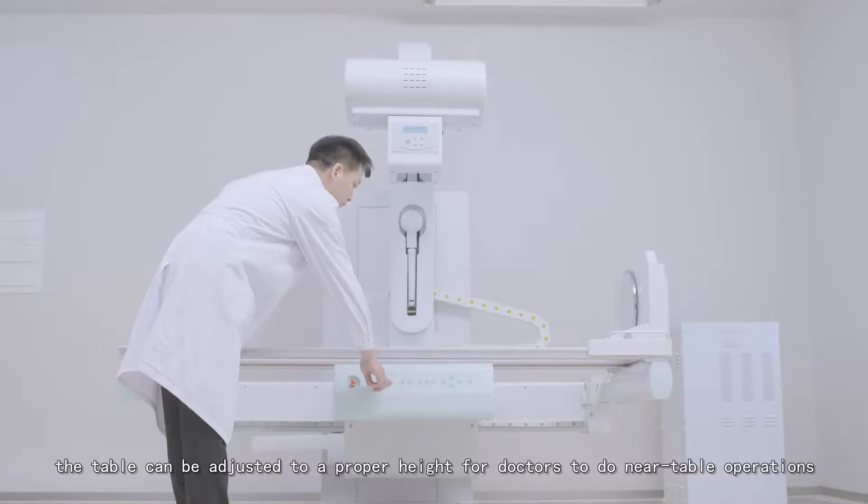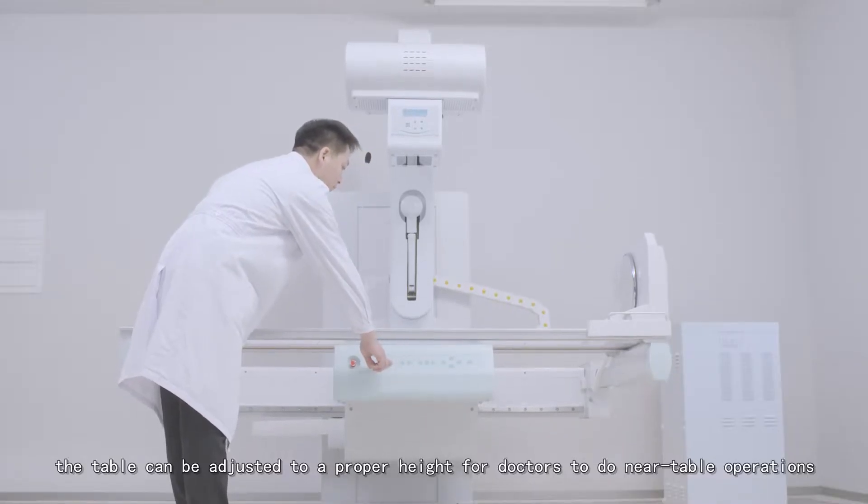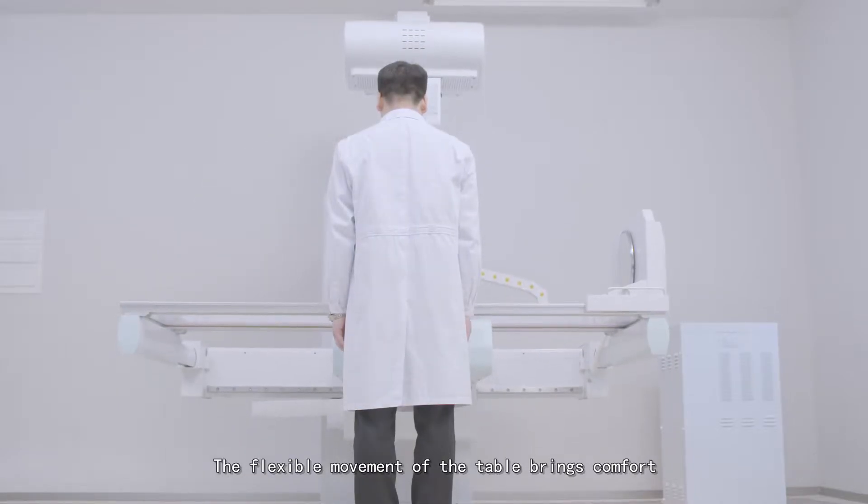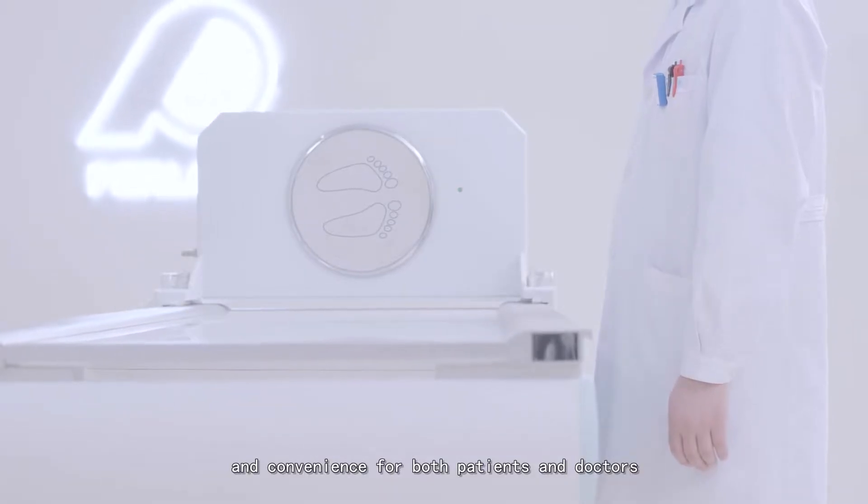In the meantime, the table can be adjusted to proper height for doctors to do near-table operations. The flexible movement of the table brings comfort and convenience for both patients and doctors.